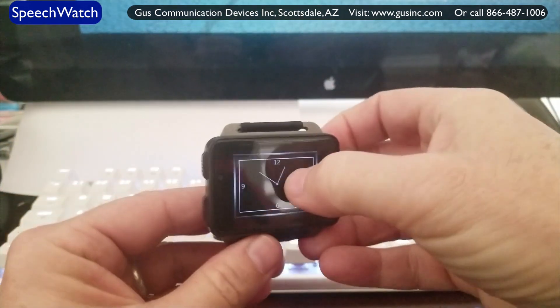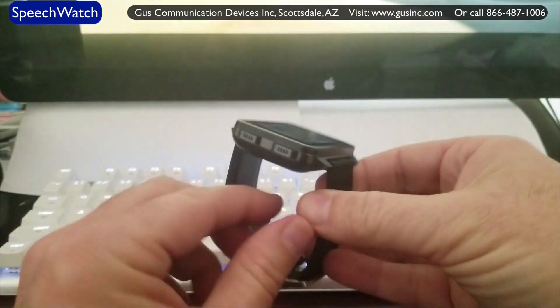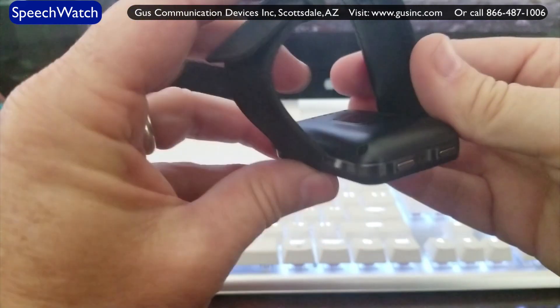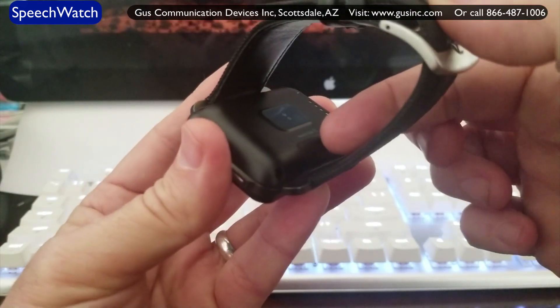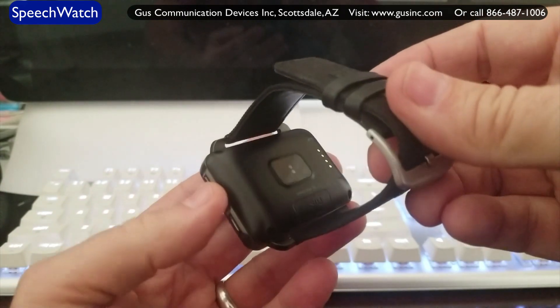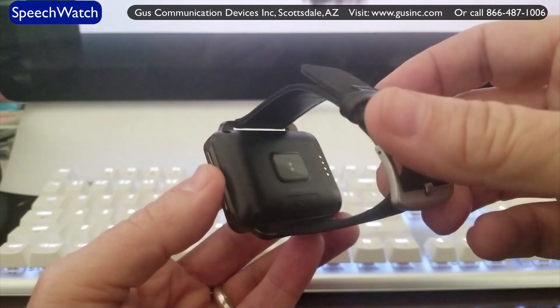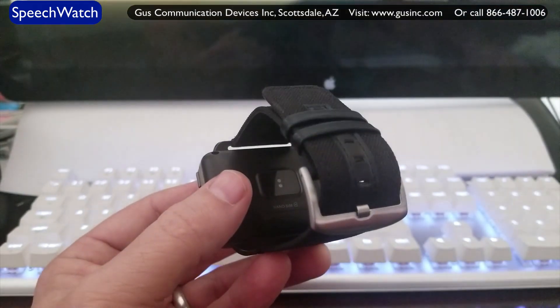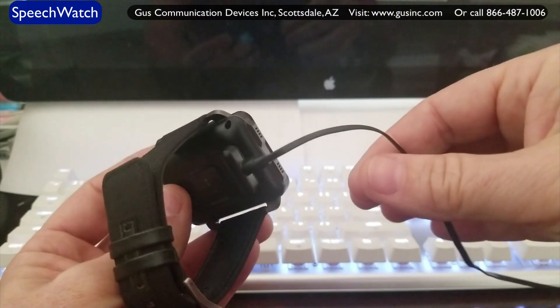Now let's take a tour of the watch. On the left-hand side, there's a microphone and a speaker. This is a smart watch, so you can use it as a full cell phone. If I flip it over to the back side, there's an opening where you lift it off and put your SIM card in. This becomes a fully functional cell phone — texting, phone calls, GPS tracking, finding restaurants. Everything you do on your phone, you can do on this. It even has Google Voice. The charger connects here via USB with a little magnetic function. Charge up for an hour and a half and you're good to go.